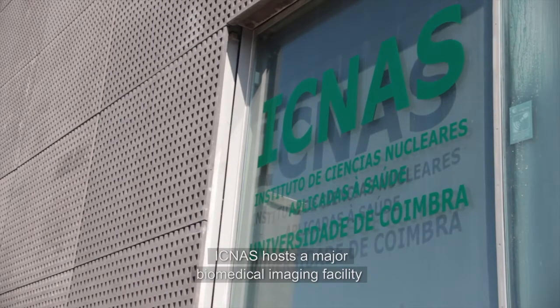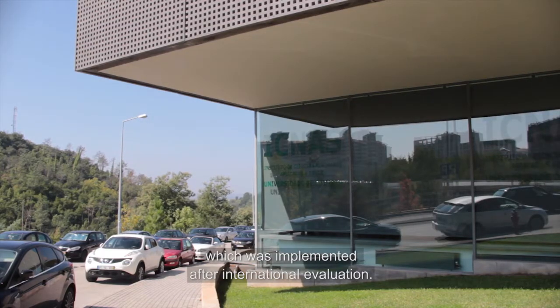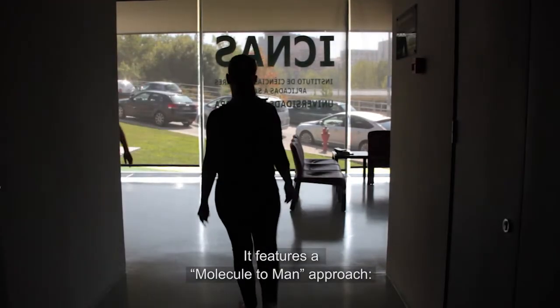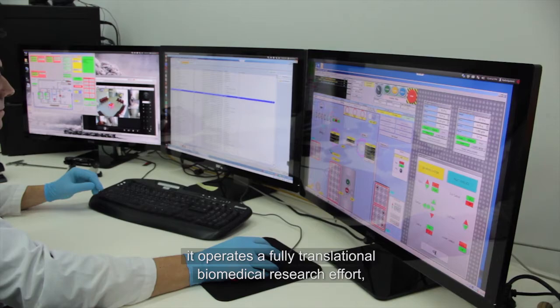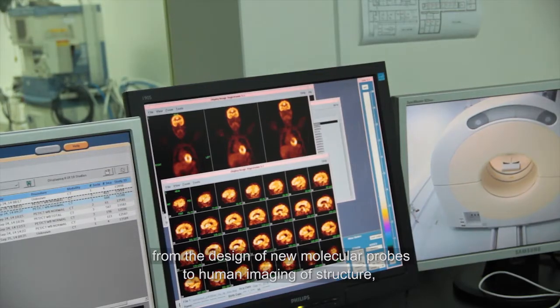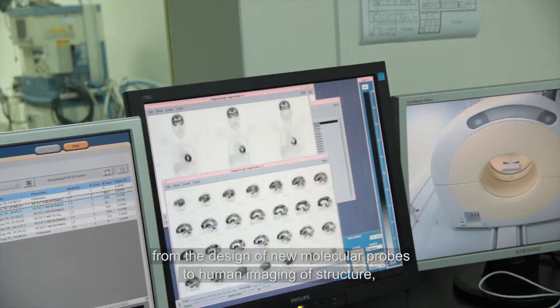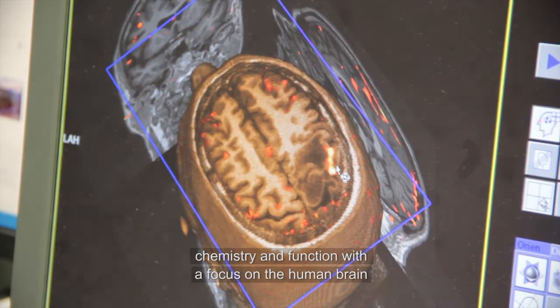ICNAS hosts a major biomedical imaging facility which was implemented after international evaluation. It features a molecule to man approach and operates a fully translational biomedical research effort from the design of new molecular probes to human imaging of structure, chemistry and function with a focus on the human brain.